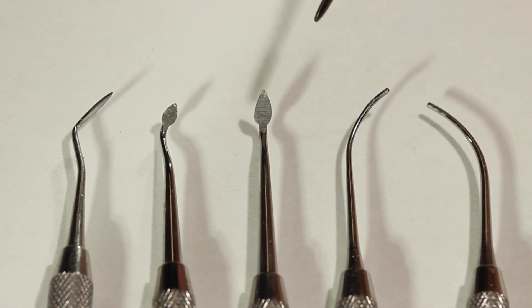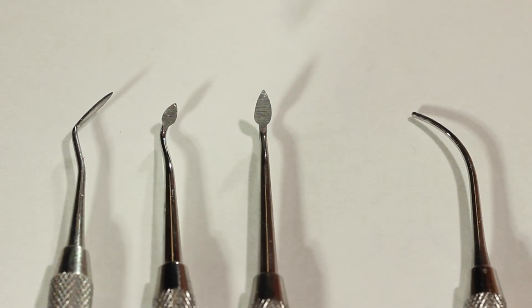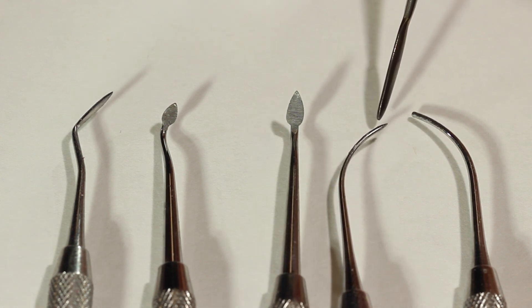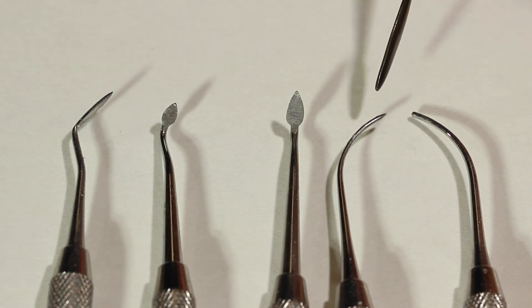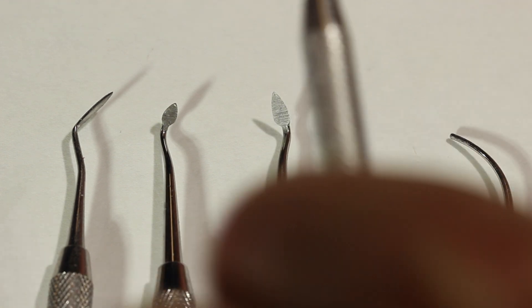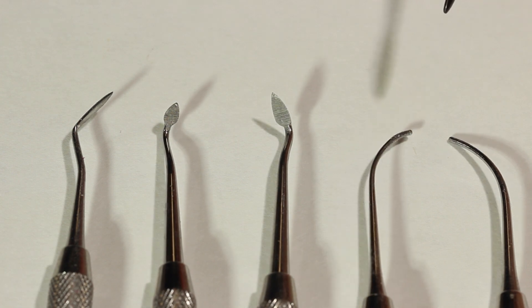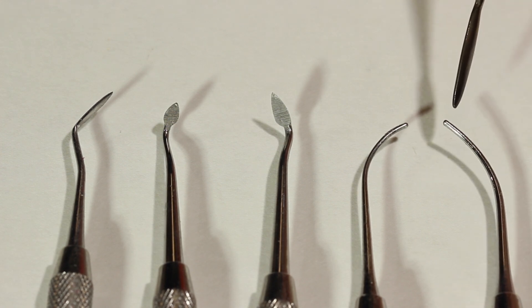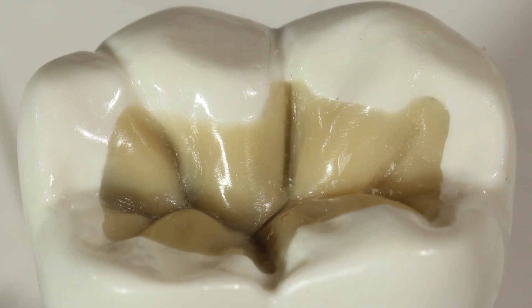The next two instruments are the PKT instruments, and there are essentially four ends to them. Starting with the smallest end: it actually comes to a point, which is really useful for getting fine anatomy in your grooves, or using the edge of it to burnish and get out rough spots. The smaller one has one sharp end and one end that is approximately the same size but blunt. Then there's a next larger increment, and here's the large end.